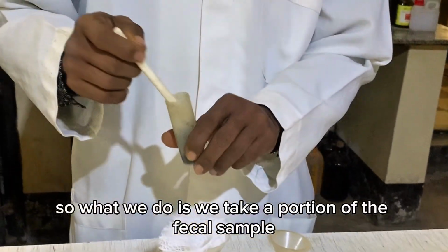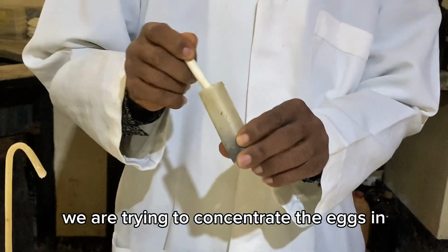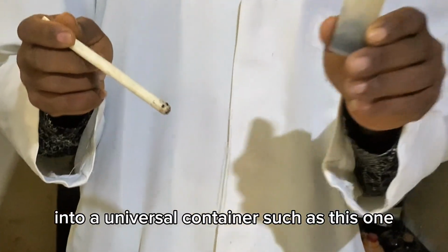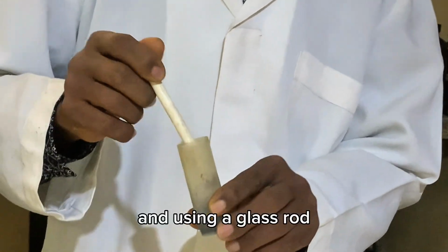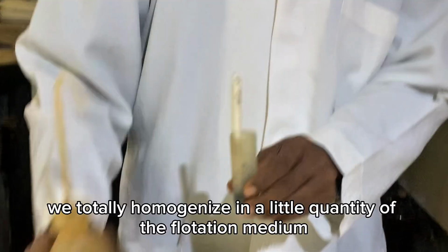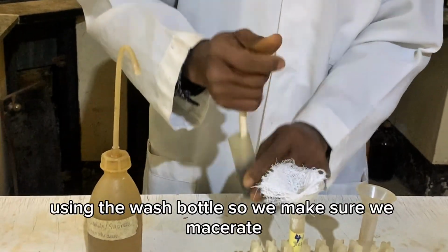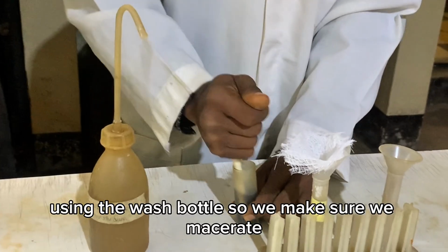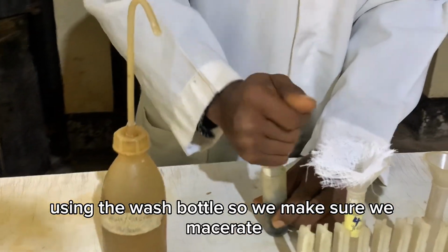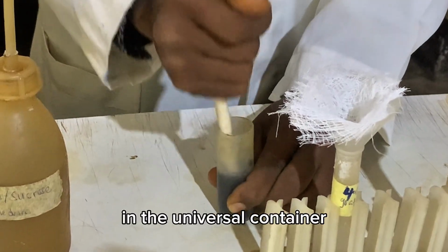So what we do is we take a portion of the fecal sample we are trying to concentrate the eggs in, into a universal container such as this one, and using a glass rod, we totally homogenize it in a little quantity of the flotation medium using the wash bottle. So we make sure we macerate and homogenize thoroughly in the universal container.